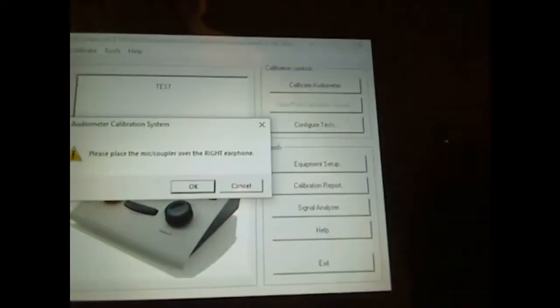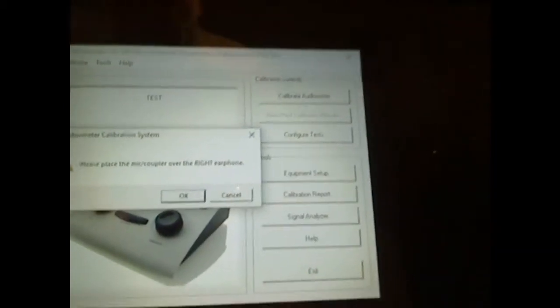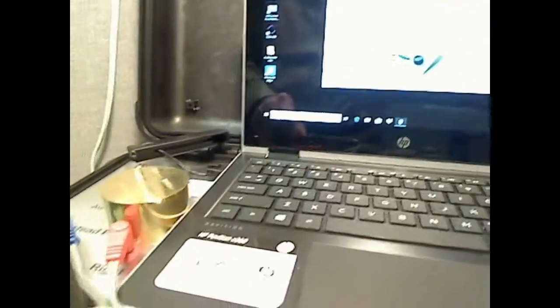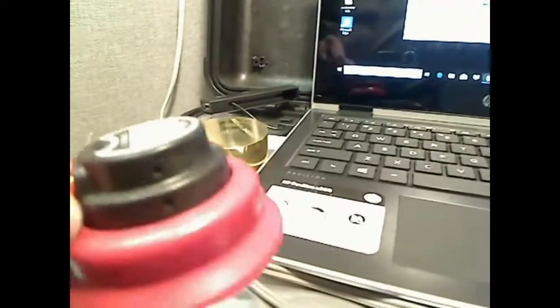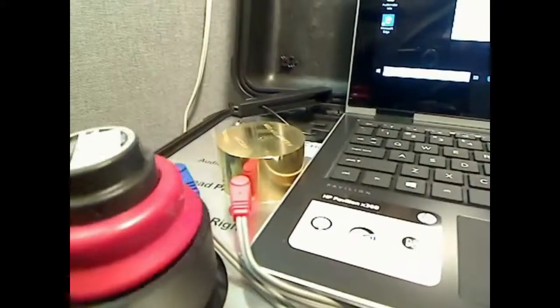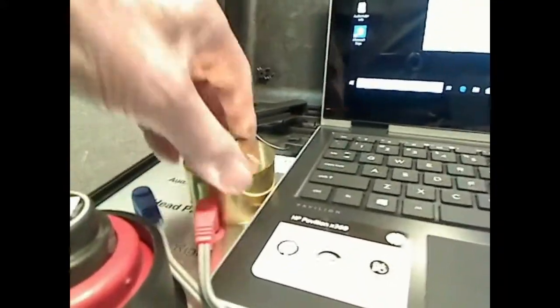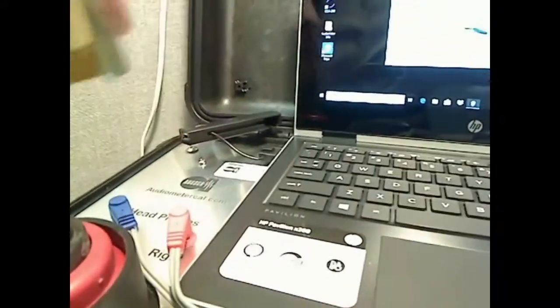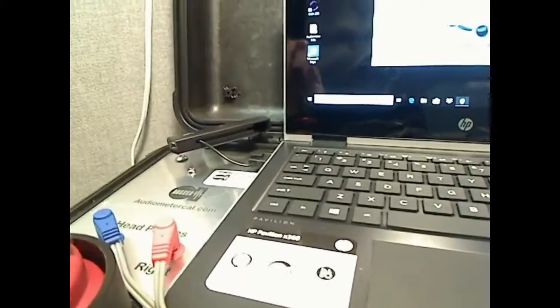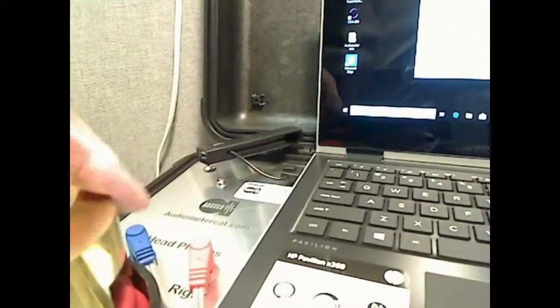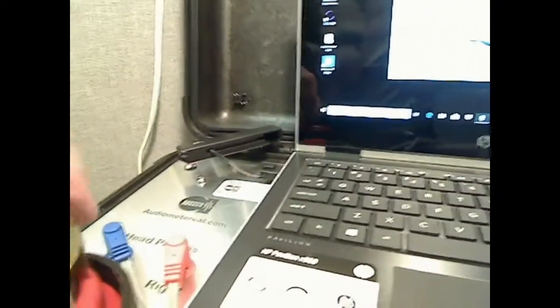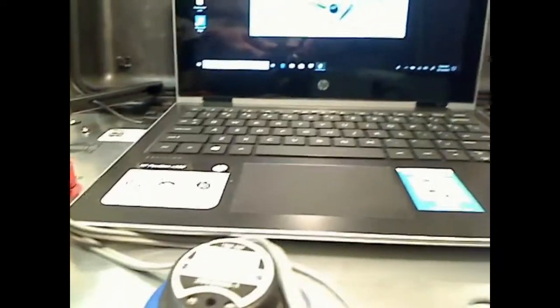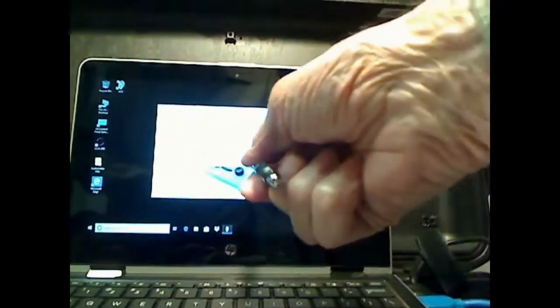It says put the headphone on the right, put the right headphone on the coupler. Come back down over here. Place that on that. I'm going to put the weight back over there. Put that on there stable. Come back in over here and say okay.